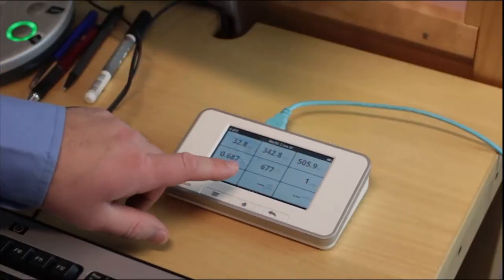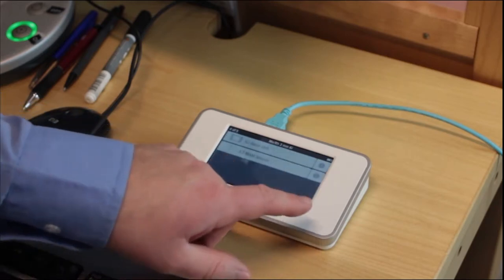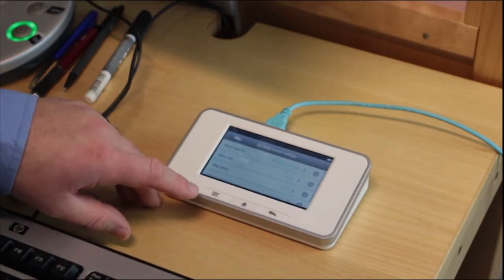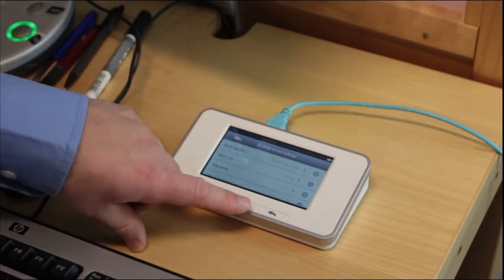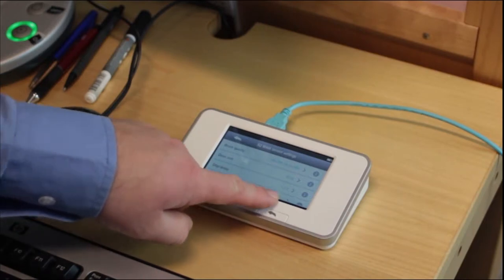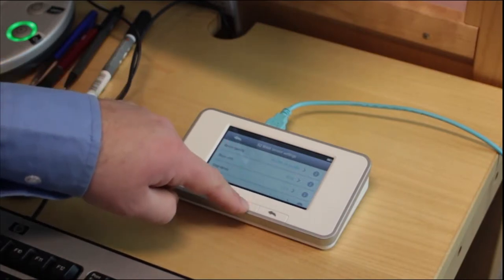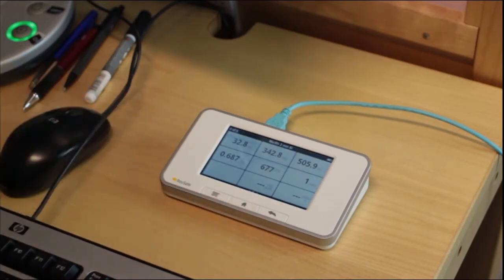So first, we make sure we have sufficient stop delay so we can capture the whole exposure, even the empty space between the pre-pulse and the main exposure. 1.2 seconds is good enough. So now we make the exposure.